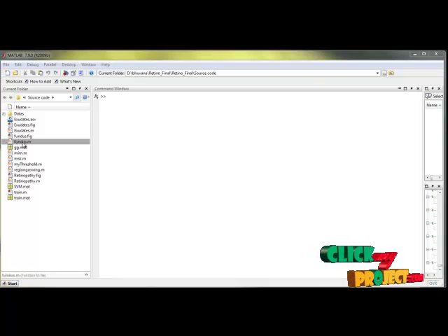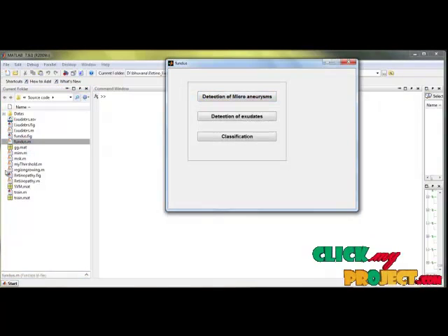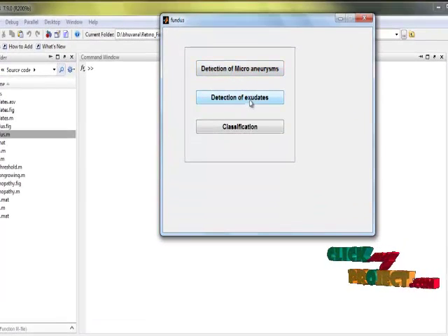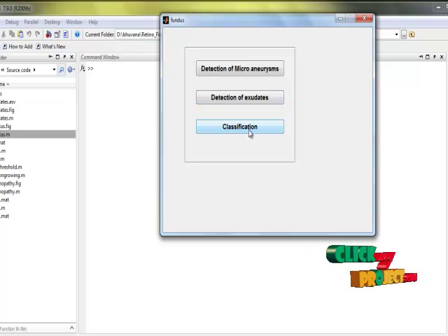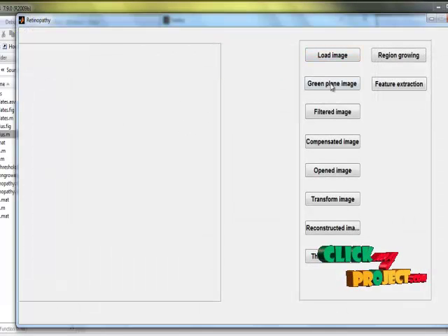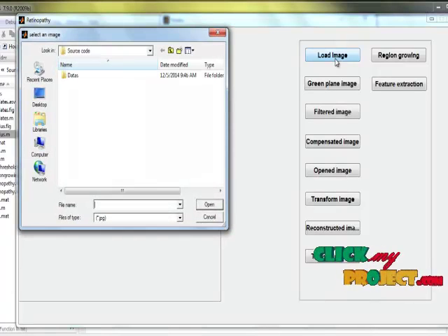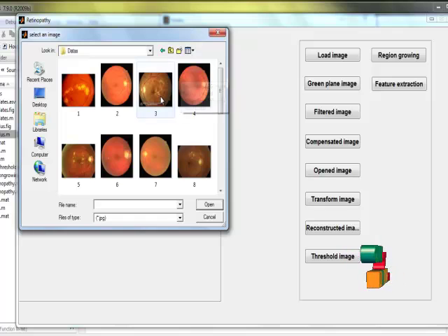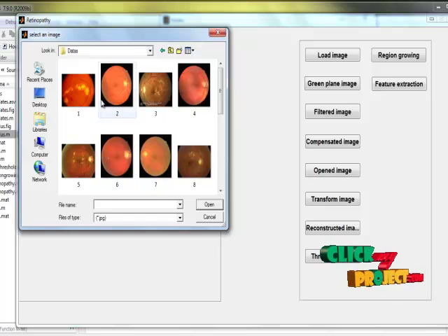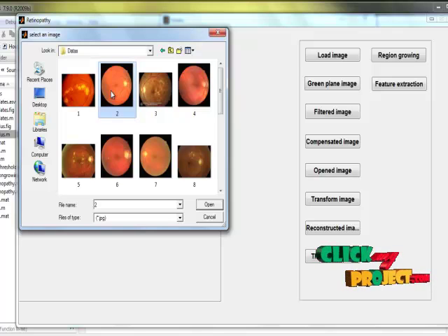The main code is in fundus.m. I am running this file. The detection of microaneurysm, detection of exudates, and classifications are all in fundus.m. First, the detection of microaneurysm — we have to load the input image from the data folder. We can give any image from this data; all the images are in JPG format. Now I am selecting an image.